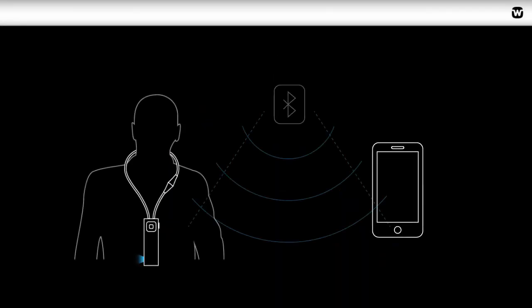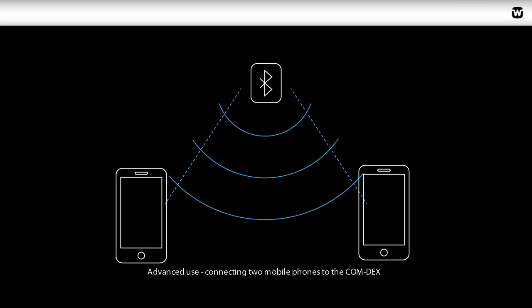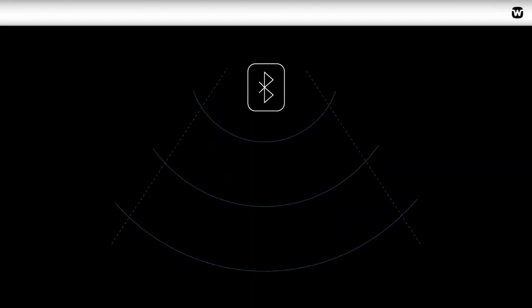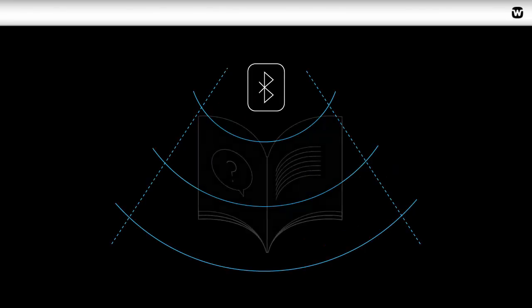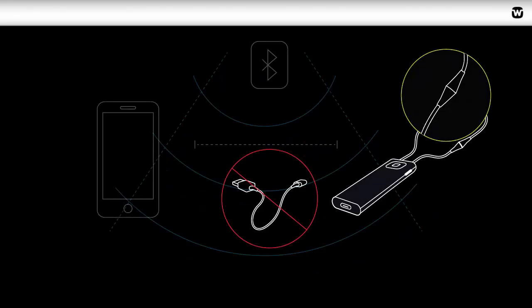Welcome to this tutorial on how to pair a Comdex with a mobile phone using the Bluetooth standard. This tutorial covers the standard steps for Bluetooth connection from any mobile phone, as well as basic steps for iPhone and Android smartphones running the latest software updates.